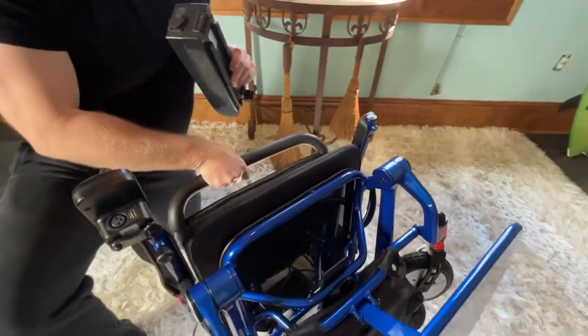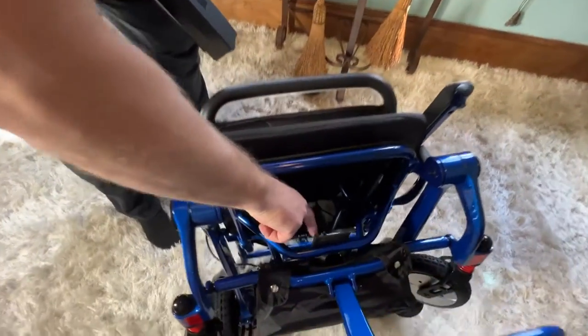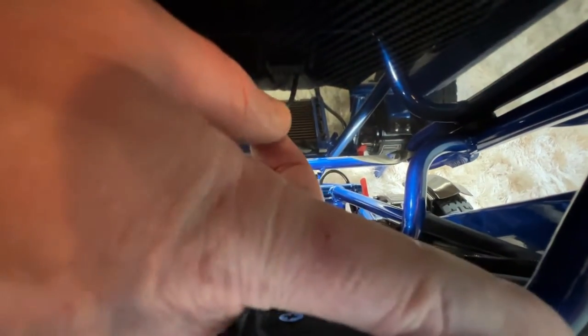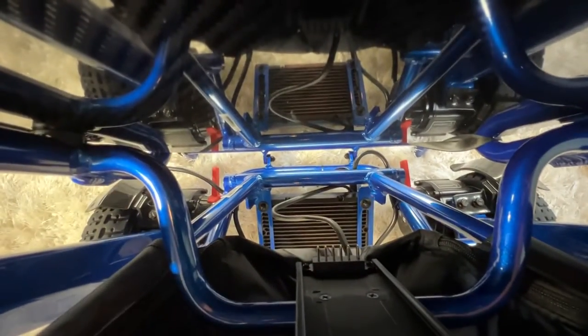So let's say that we've charged the battery and we're swapping a battery. Let's take a look at the chair. We have a full track that is going to be on the left-hand side if I'm standing in front of the chair, and that's not all the way up on the right-hand side — that's designed on purpose.